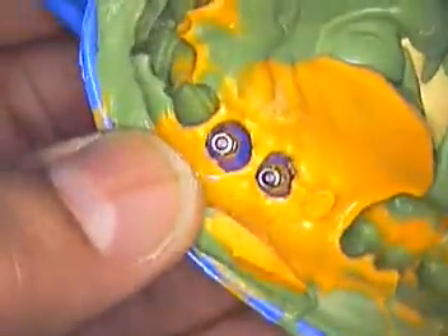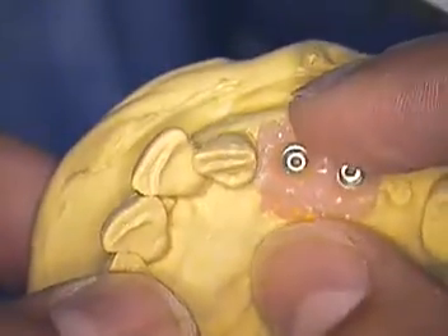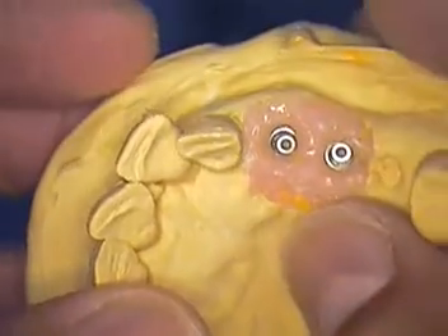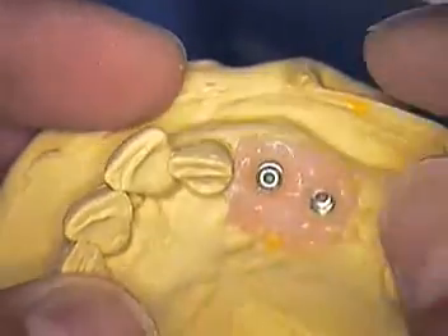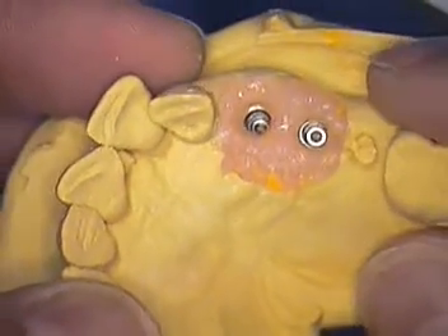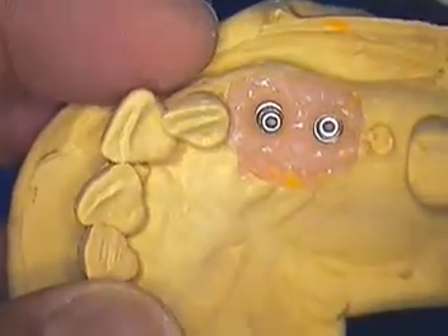This is the impression. It was pulled from this model by my in-house laboratory that I've been utilizing for 20 years. They know that they need to make this soft tissue gummy model. This is a fixed bridge that we're going to eventually make for this patient, so we don't want to separate the model into separate dies, defeating the purpose of stability and making sure that the bridge does not rock when we go to the try-in.